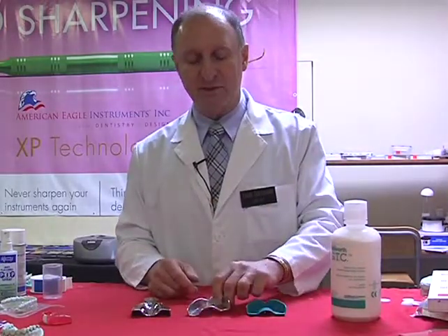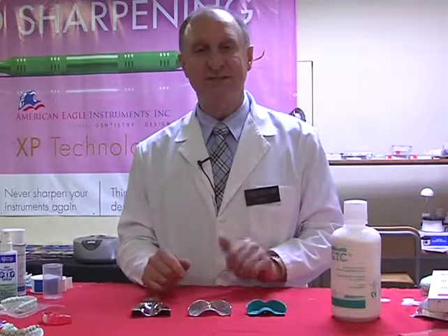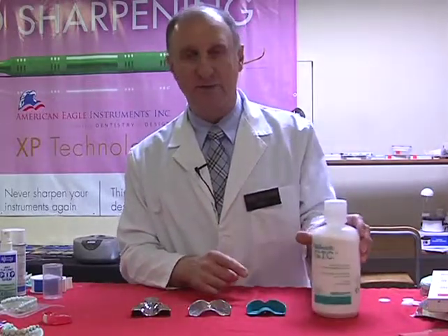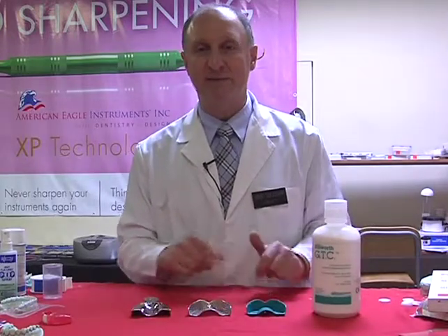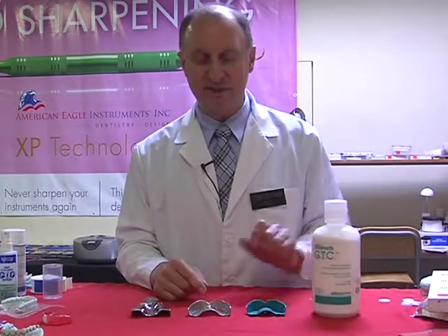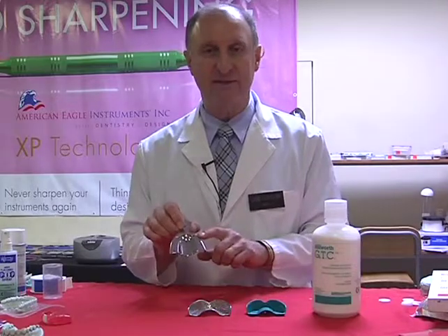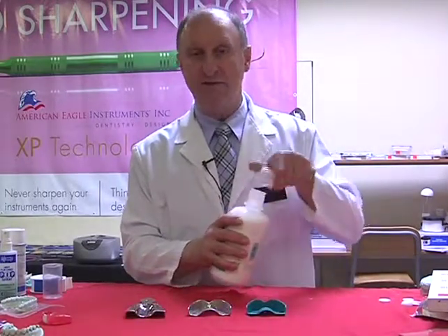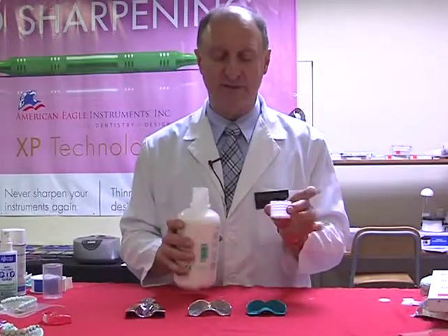Then they go into a soak solution that's going to remove any residue that was left inside. The general tray cleaner from Bosworth is probably one of the best effects. I've tried pretty much all the systems out there, and this produces a nice, shiny, clean surface of the impression tray. One capful, these crystals dissolve very quickly, so just a matter of dissolving them through.